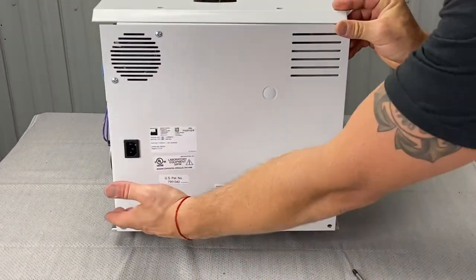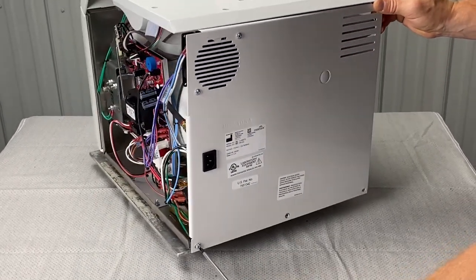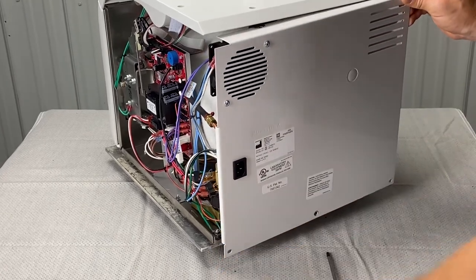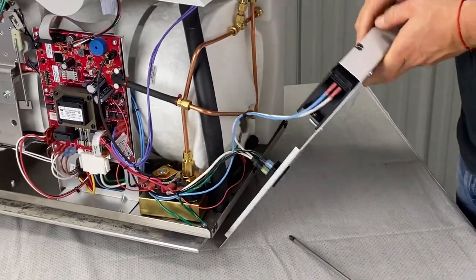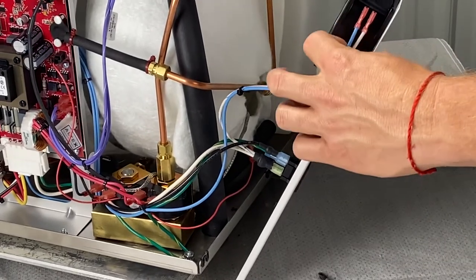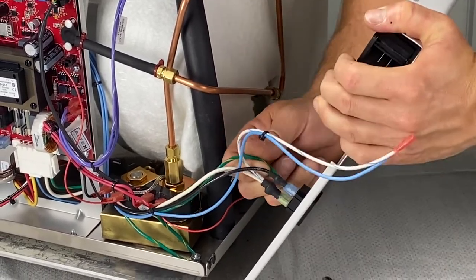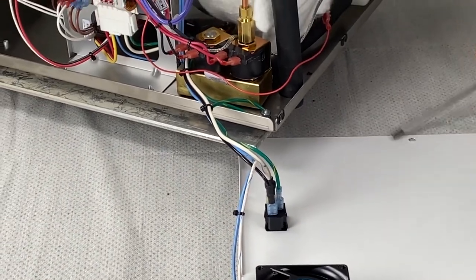We've got three screws back here. This is the back panel. Remember, we've got the power receptacle hooked up. I'm unscrewing this — save all these screws. The back panel is coming off now, so hold on to it. Take a picture of where these wires go. Unhook the fan, and possibly unhook this connector as well. Otherwise, you can let it sit and lay on a flat surface if you've got enough room.